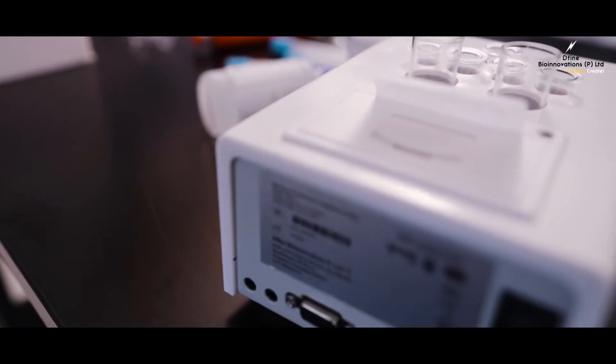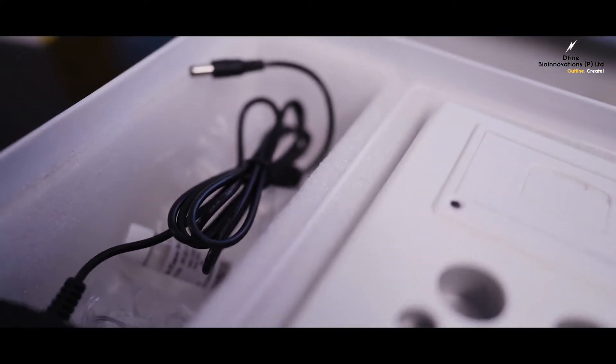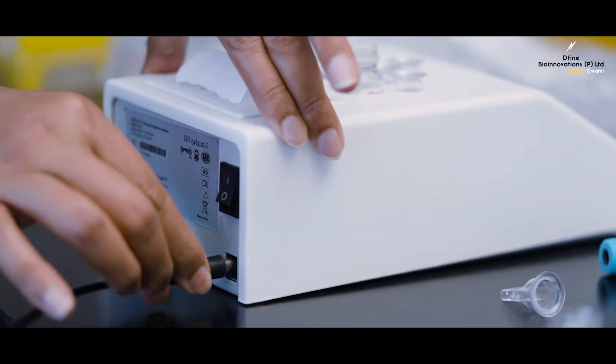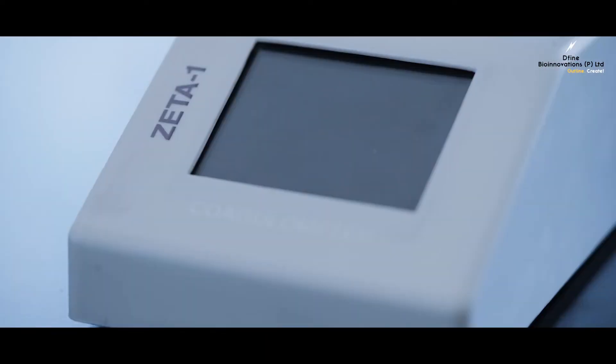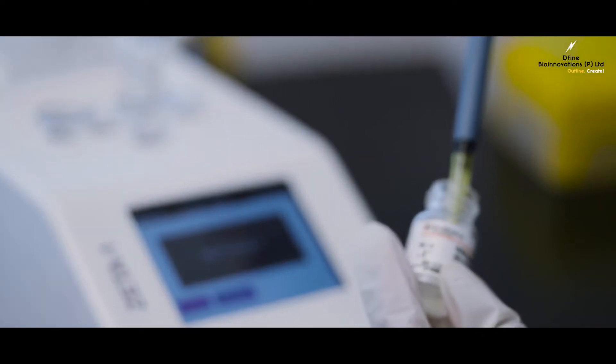For the first time ever, introducing a power adapter that will ensure uninterrupted functioning of the system for more than 2 hours during power disruptions.